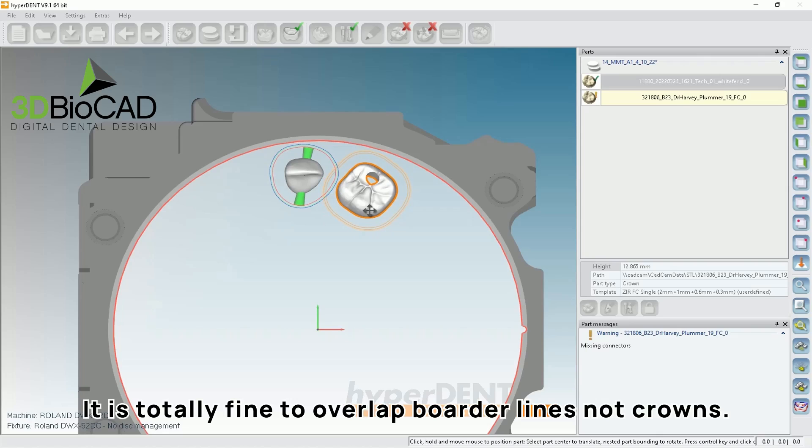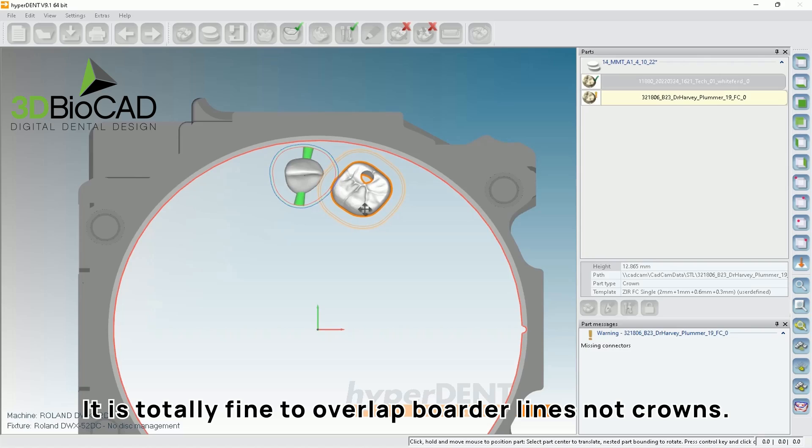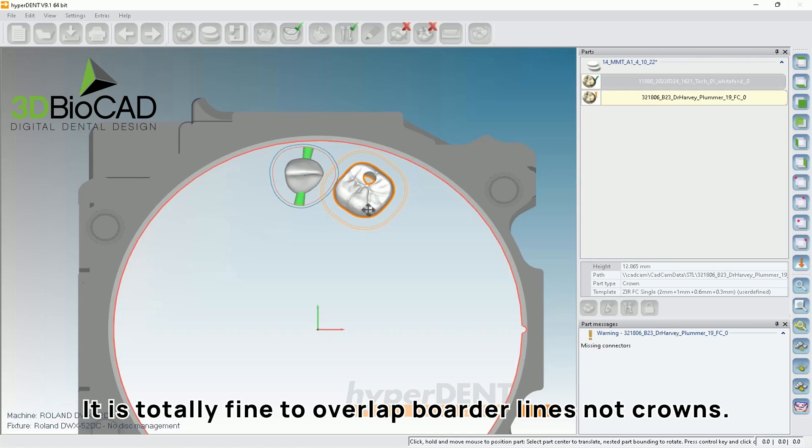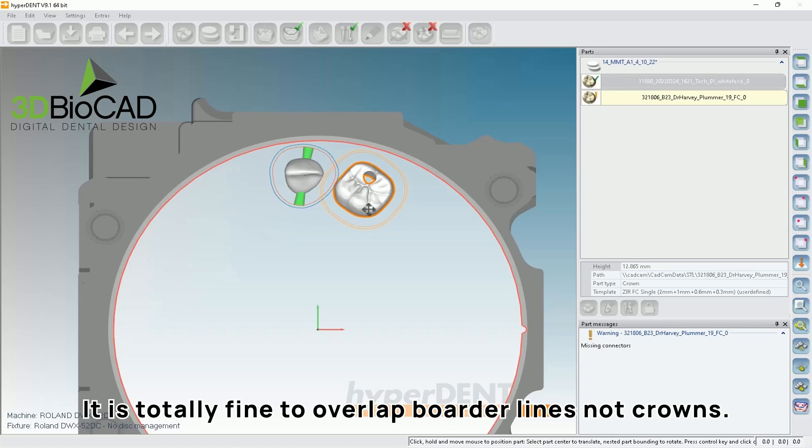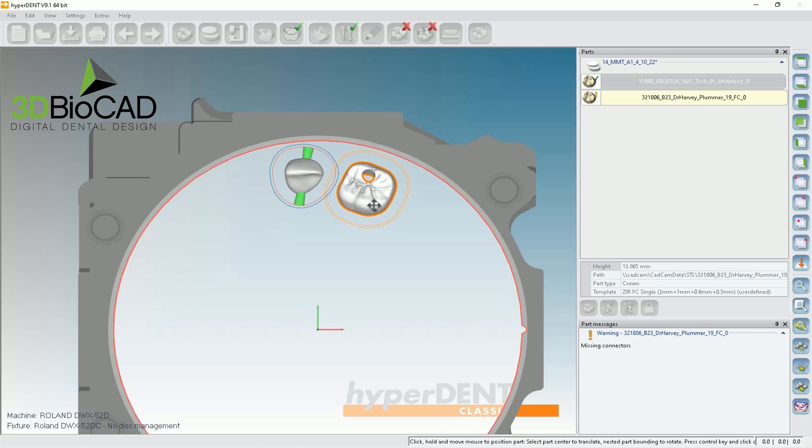People ask me, is it okay to cross from each border lines? You don't want to physically touch the STL files. But if the border lines are just overlapping each other, then that's totally fine. But if you bring it like this, then it'll actually get cut out. So let's just have a little space and rotate like how we mentioned.